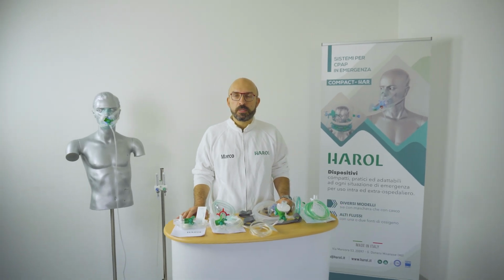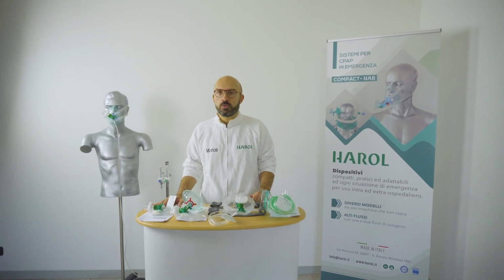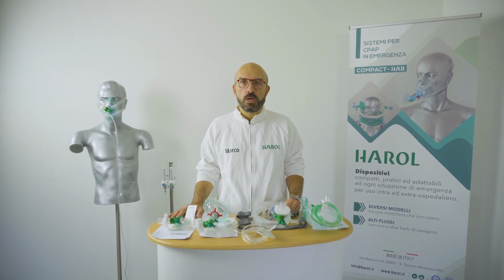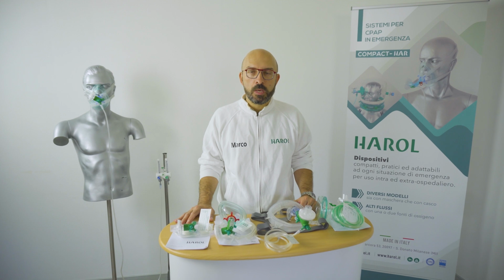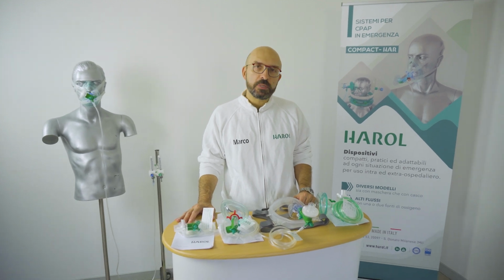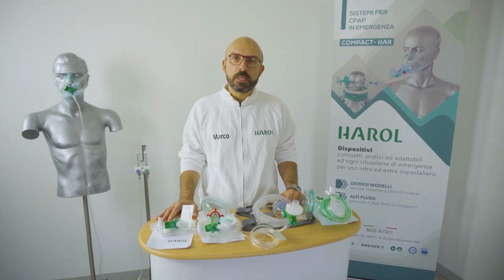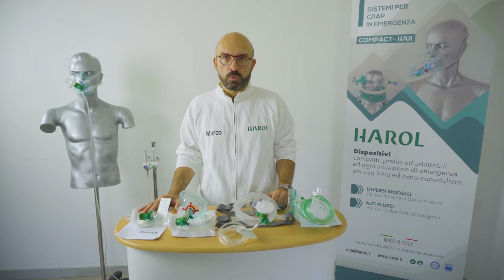In this video, we will show you the mask for an emergency CPAP therapy, namely when CPAP needs to be performed having only an oxygen flow meter connected to the central plant or a gas bottle. As we know, in a CPAP therapy, the parameters to set are the PEEP pressure, FiO2 and the flow, which has to be adequate enough to guarantee a stable PEEP for the entirety of the respiration.